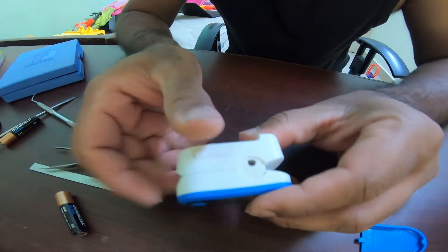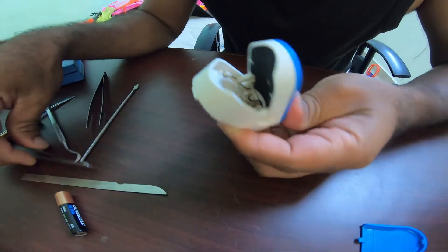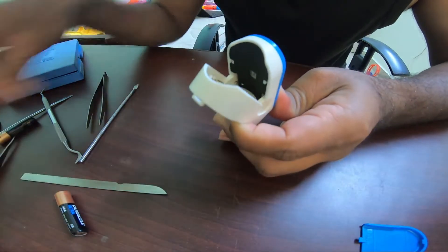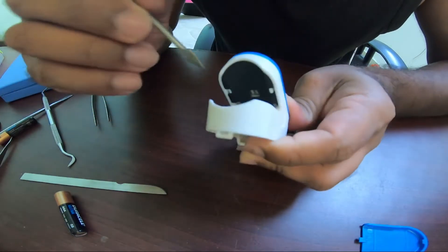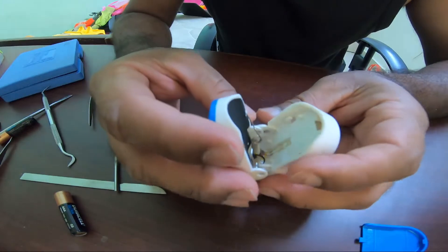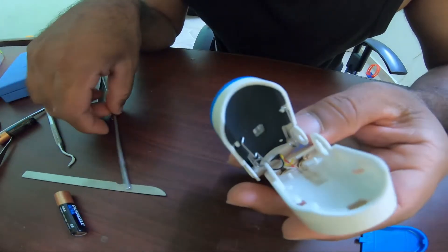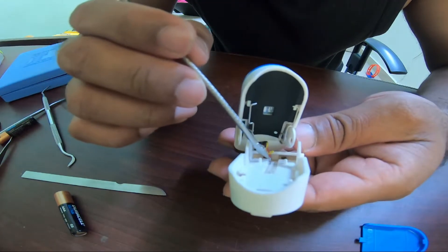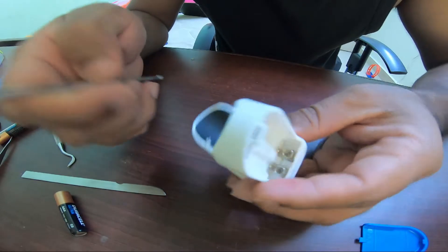After removing the side clips, we need to remove the spring — it's very easy. Just press it down and it will come out. Now we find two of the cables inside have come out: one is the yellow and another is the black.